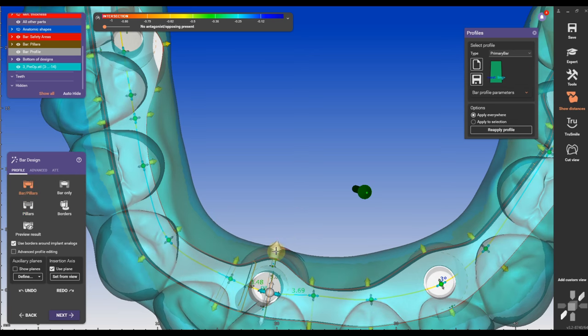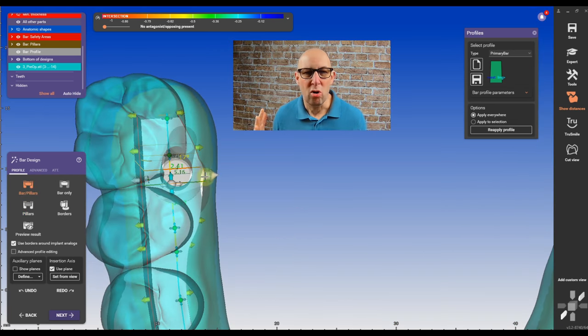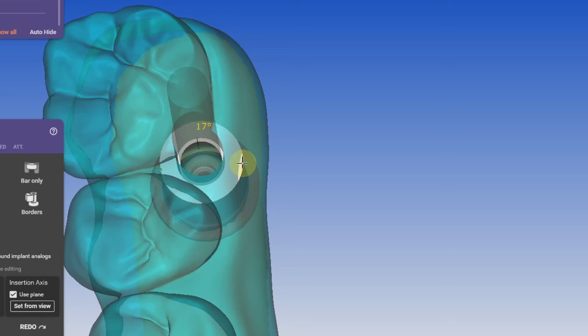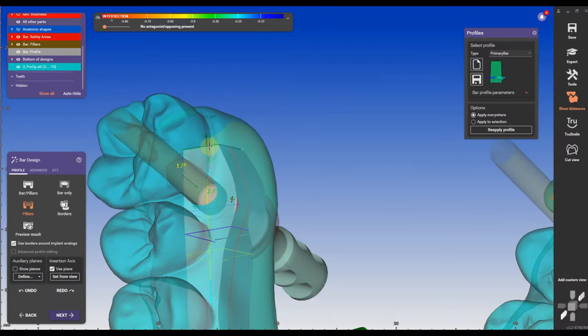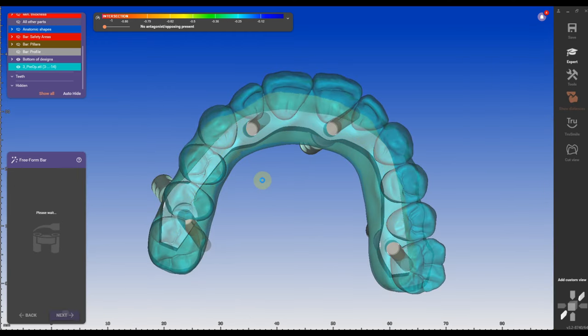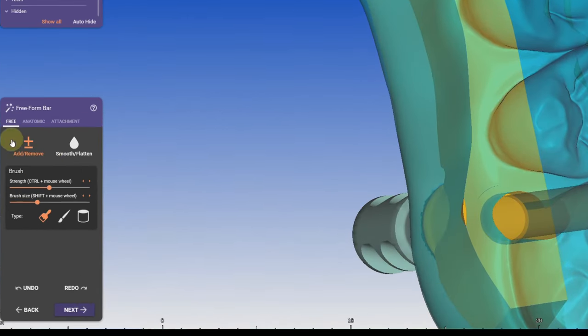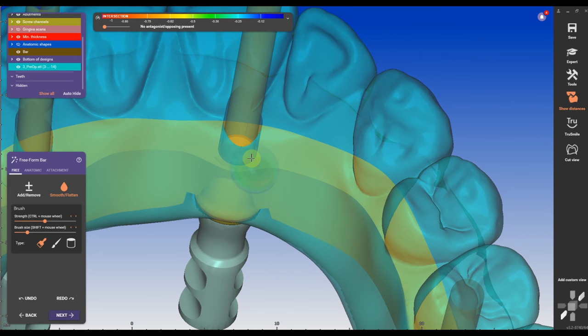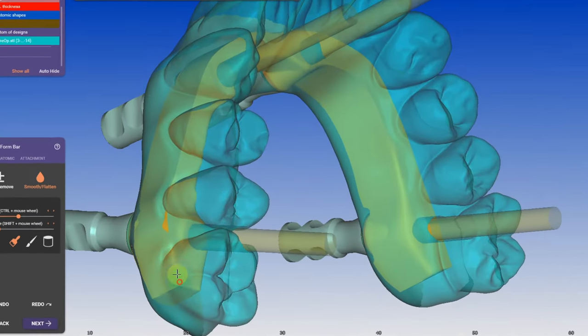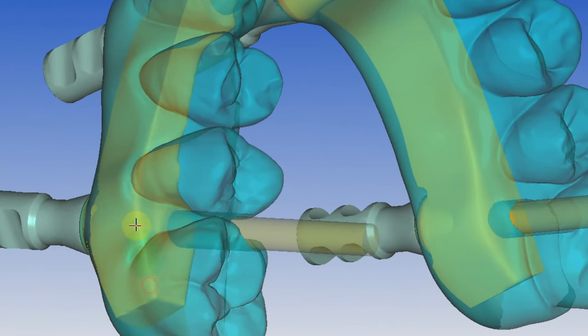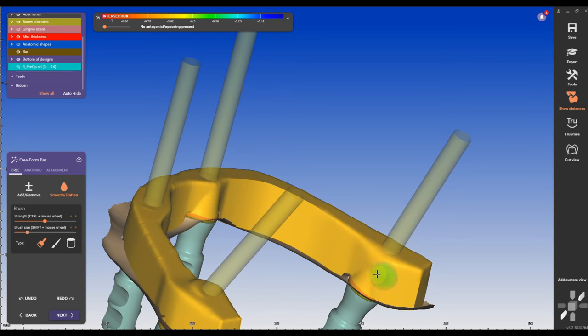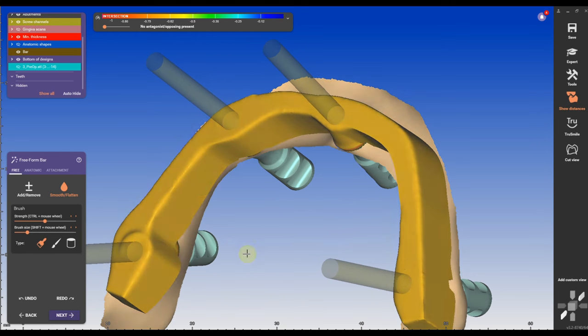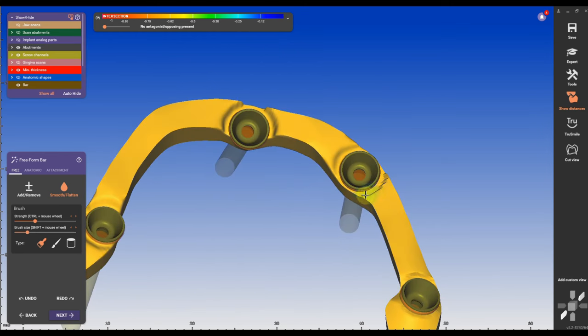I'm going to make the bar pillars a little bit more narrow like a cone shape and you can do this on all bar pillars. Some can be straight, some can be parallel. Here this is okay, I'm going to fix this later on. If this is intersecting a little bit I can fix all these things with smoothing. So with light smoothing, don't hold the shift key, don't hold anything crazy. Very light smoothing, smooth the edges of the bar. You don't want to go crazy, you don't want to over smooth and create any undercuts. Undercuts will create non-inserting actions.